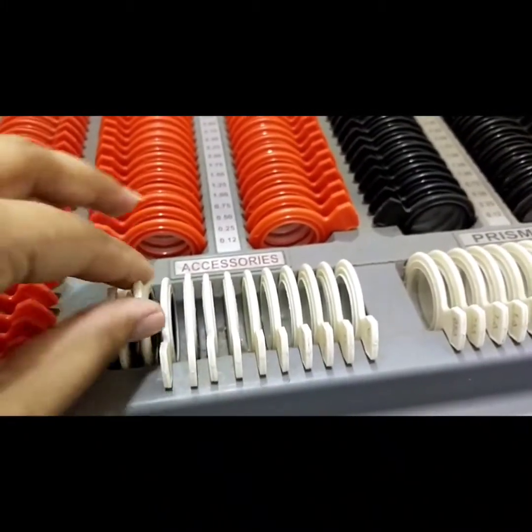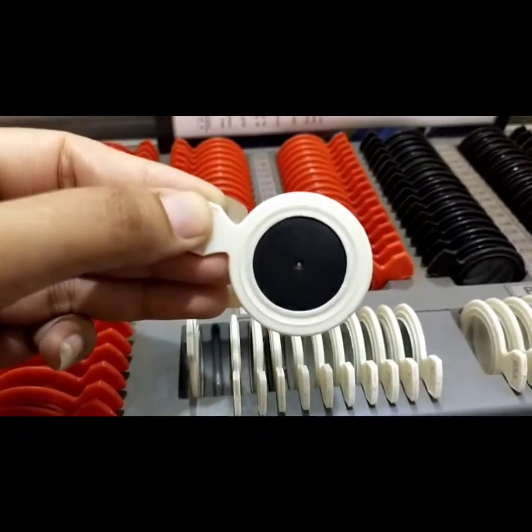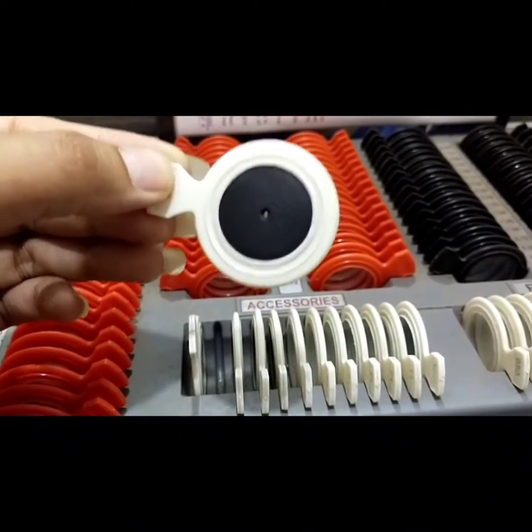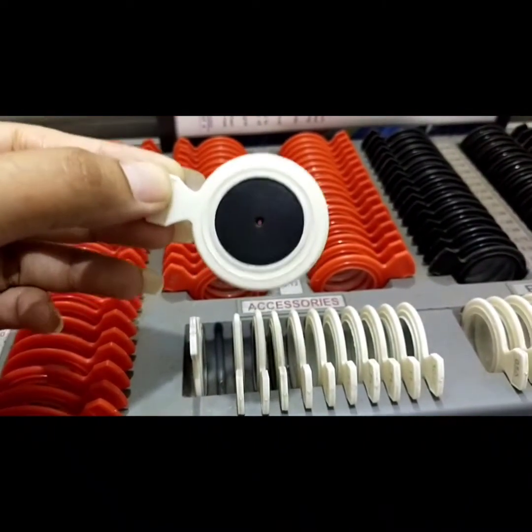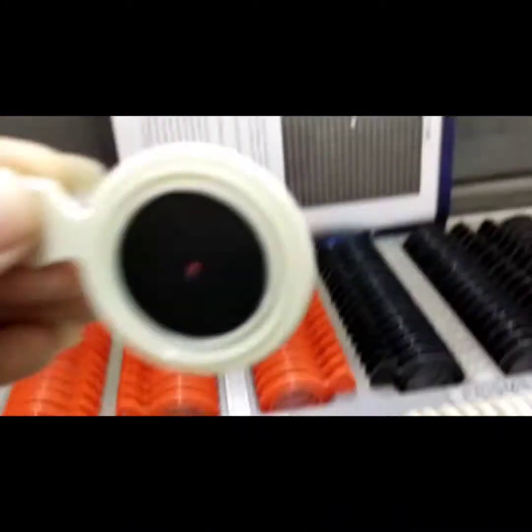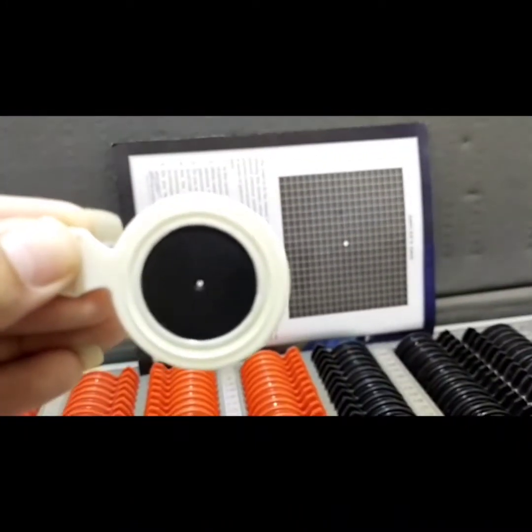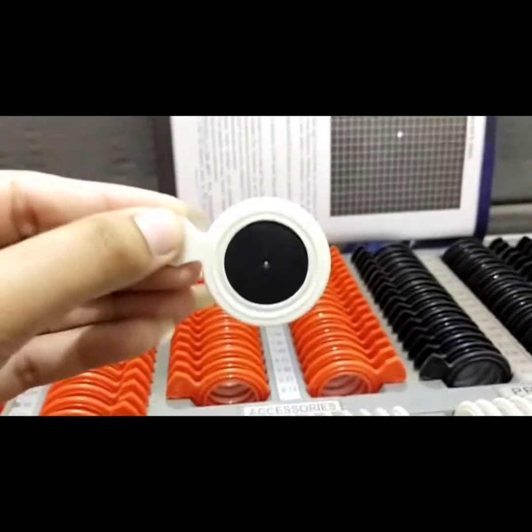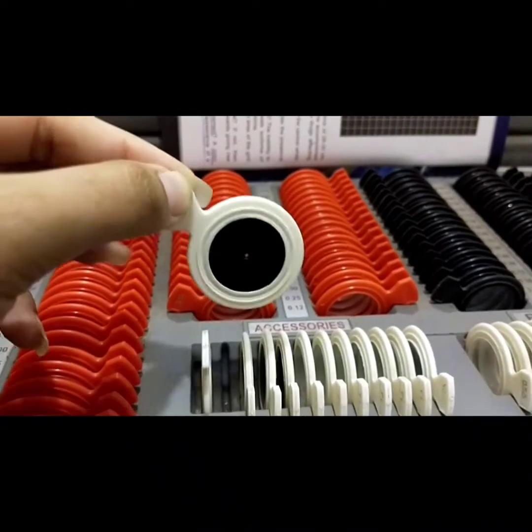The next accessory is the pinhole. It is also an opaque disc with a hole of about one to two millimeter diameter in its center. It is used to determine whether a patient has a refractive error or a pathological error.